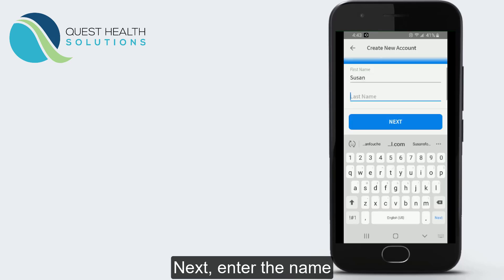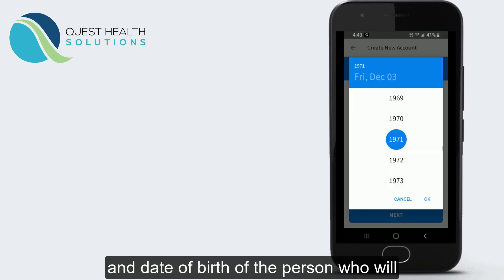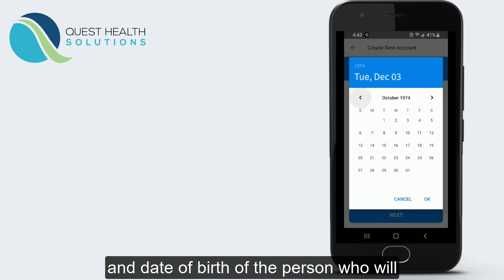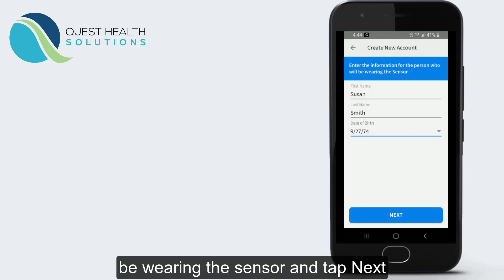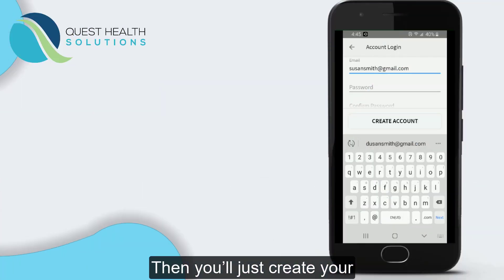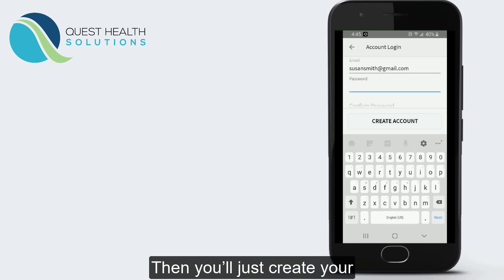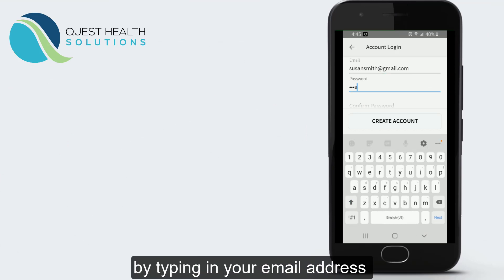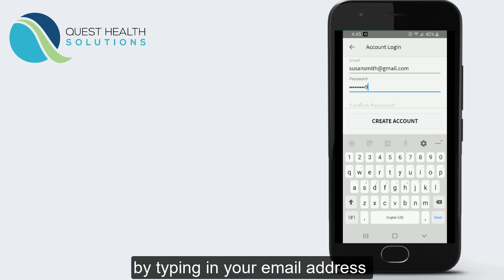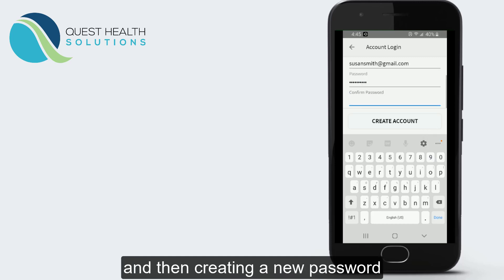Next, enter the name and date of birth of the person who will be wearing the sensor and tap Next. Then you'll create your Freestyle Libre 2 account by typing in your email address and then creating a new password.